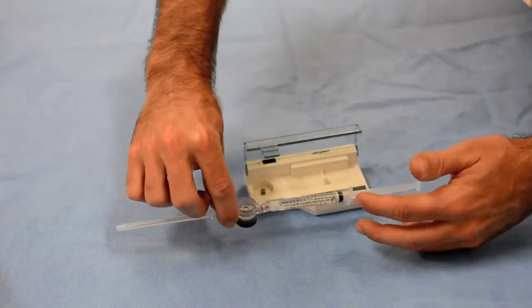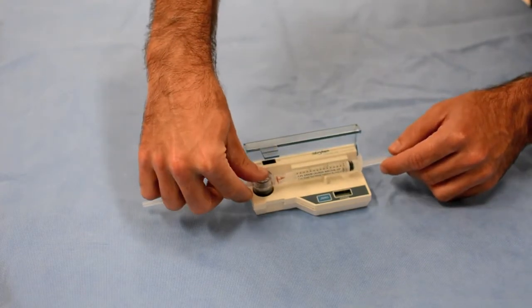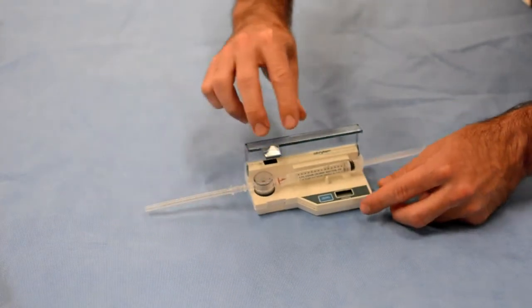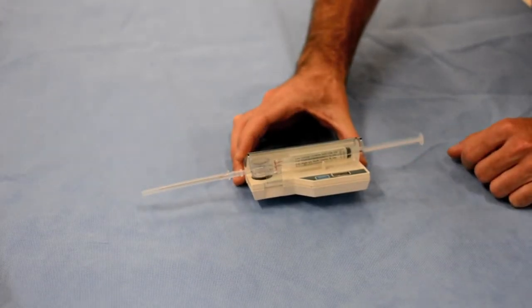This is an example if the flanges of the syringe are not collinear with the device. You can see that the pressure coupler has trouble sitting in the well, and the door on the machine will not close due to the flange mismatch.